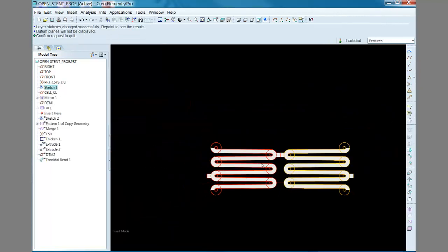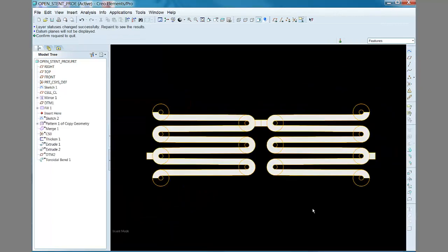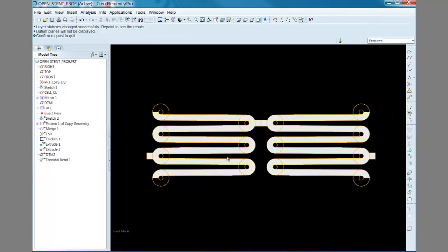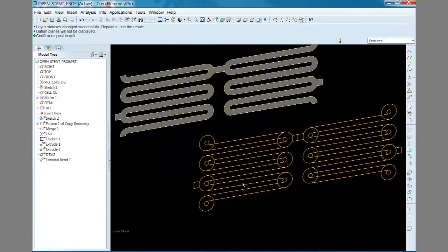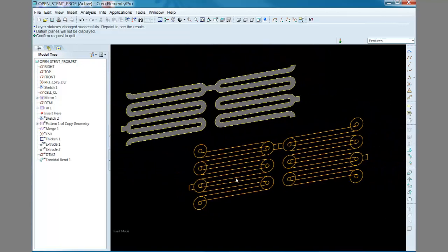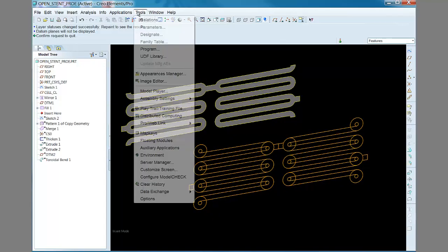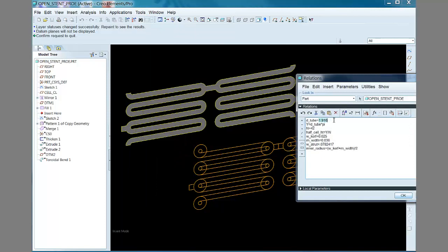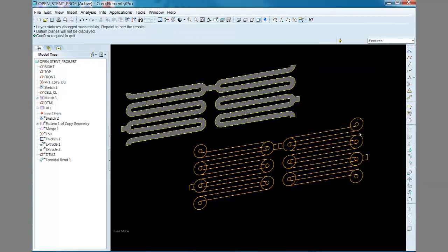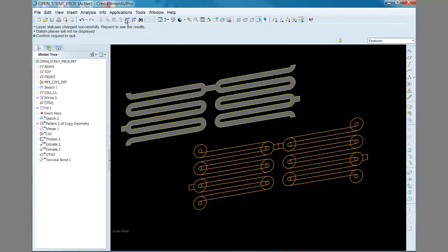You can see here how the edges of the fill surface are referenced by the sketched datum curve.